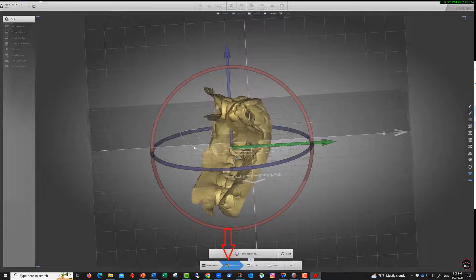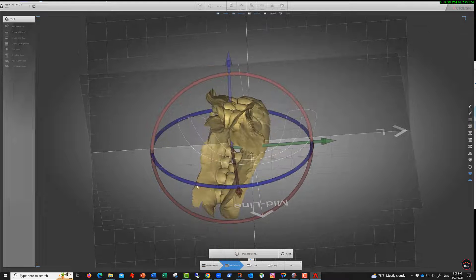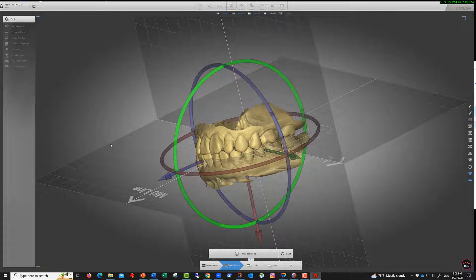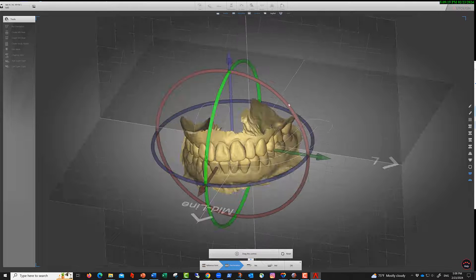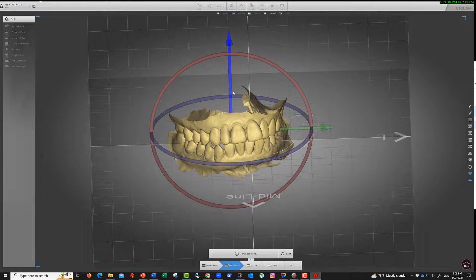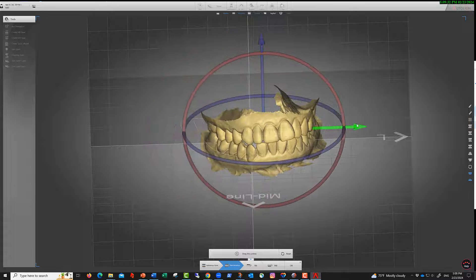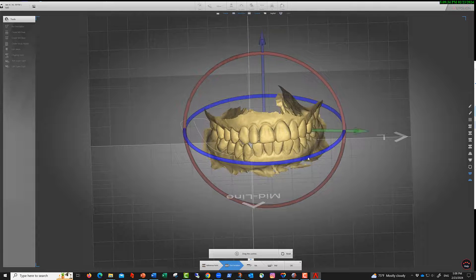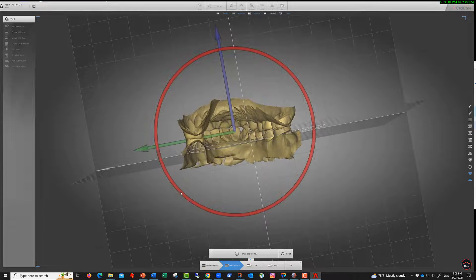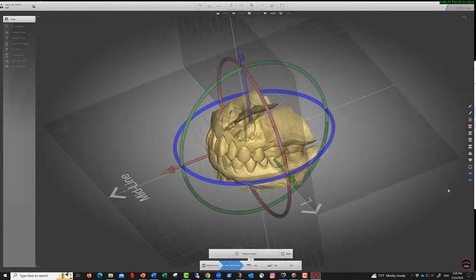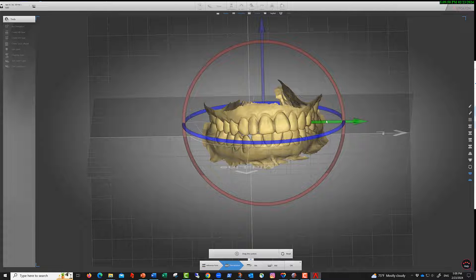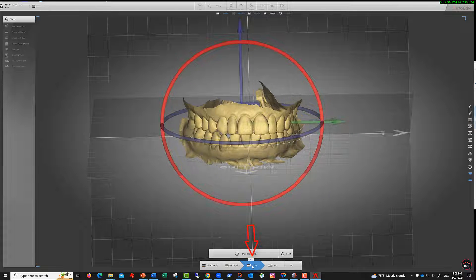You can rotate the model to get a better orientation. You may want to move it up, this way, or that way. You can check from every angle whether it's well oriented. Be careful to set the XYZ values to zero.